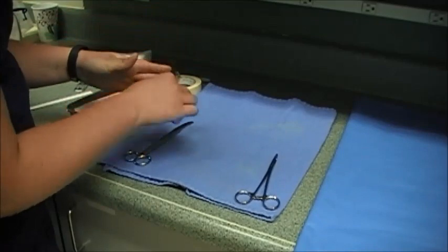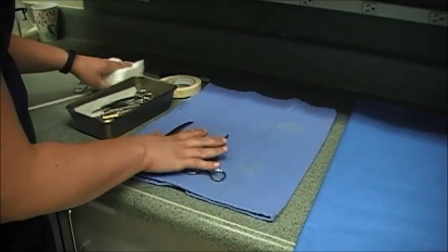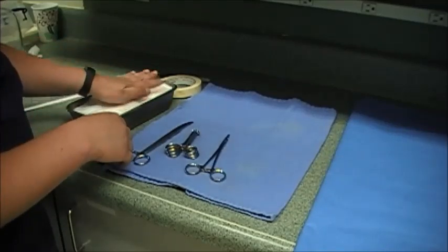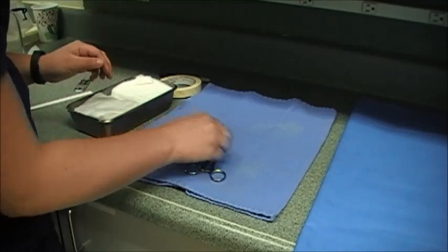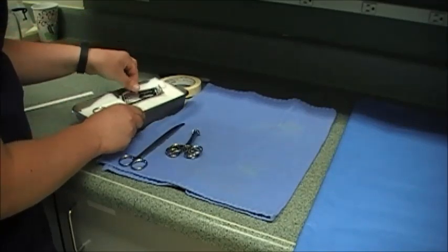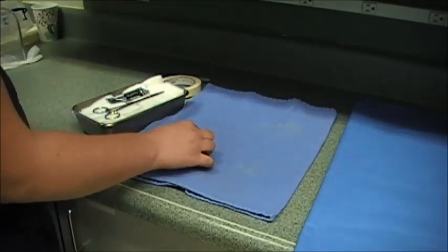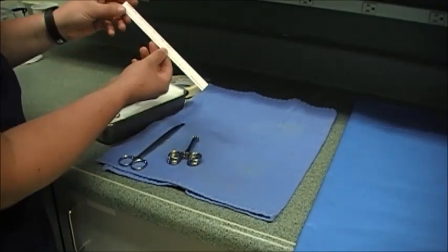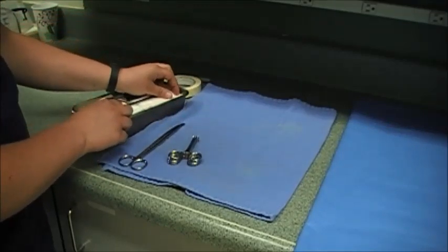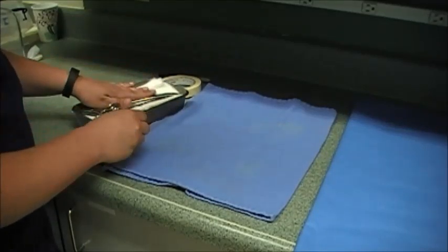I've got my towel clamps, which are also going to go on top, and my needle holders are also going to go on top. So these three things will go in last. I've got my gauze sponges here — I'm going to split them in half for each side and lay those in. Then I'll add my needle holders on top of that, and my scalpel blade. What the doctor is going to need among the first things is a needle holder and scalpel blade. Then I will add my indicator strip — this indicator strip is going to turn black all along through the center to verify that it is properly sterilized. I'll lay this on top where we can see it, add my towel clamps down at this end out of the way, and then my scissors across the top. Okay, so this is our completed general pack.